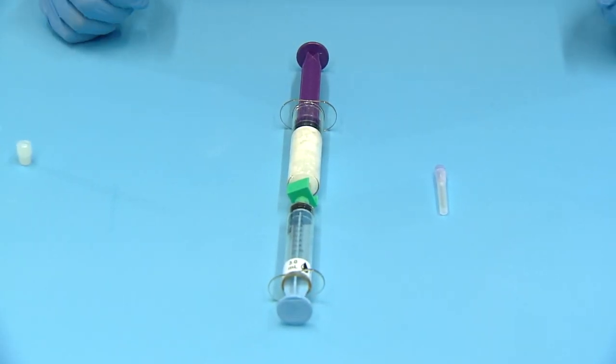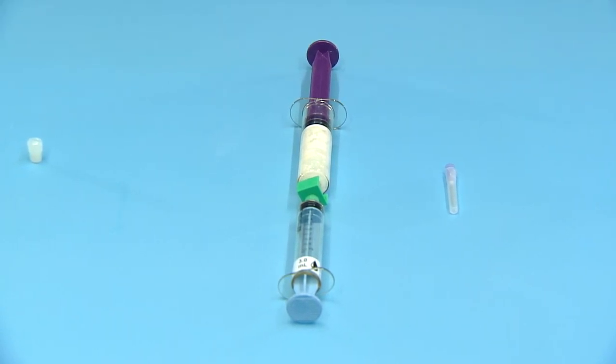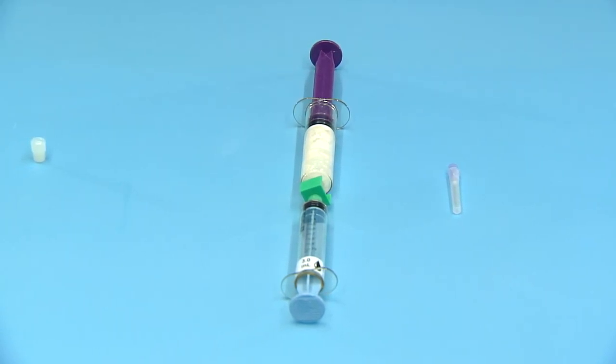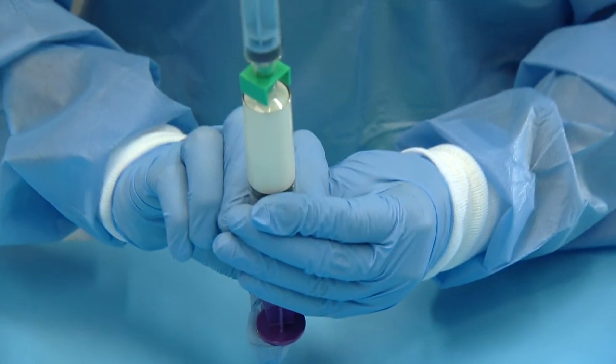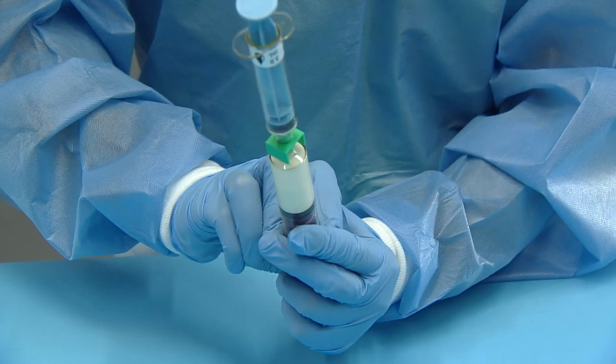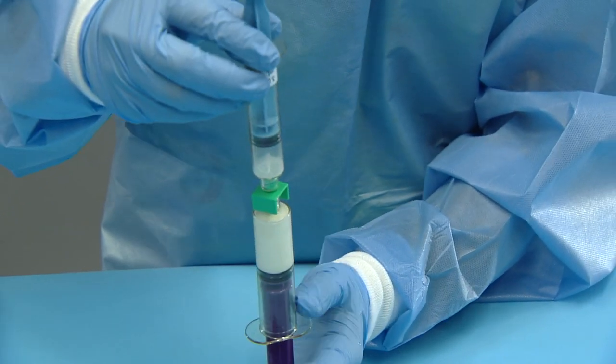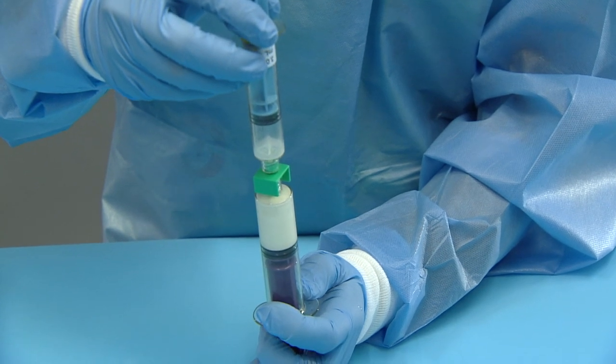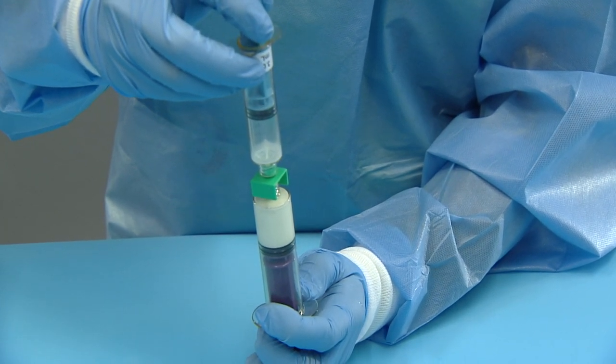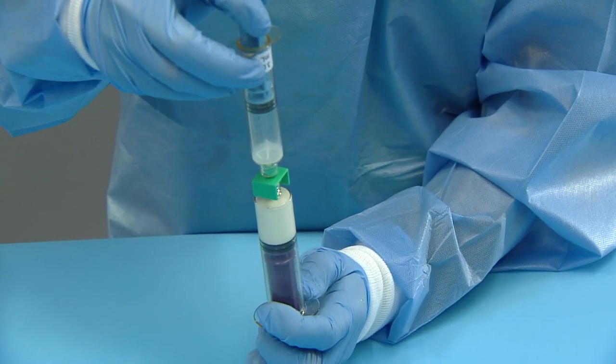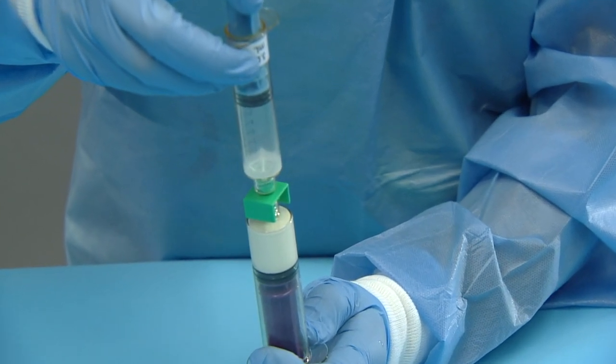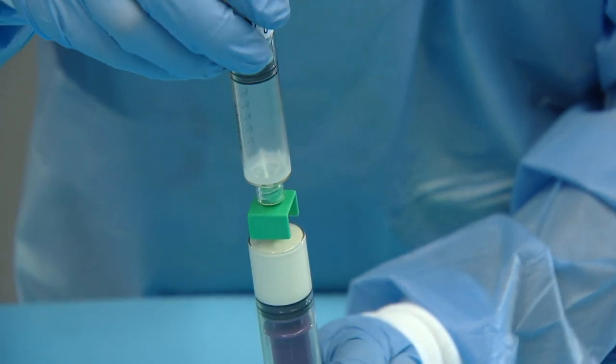Let the connected syringes rest on the table for 30 to 60 seconds. To vent air out of the system, hold the syringes vertically such that the empty saline syringe is on top and expel air from the powder syringe into the empty syringe. If paste or solution comes up, push it back down.